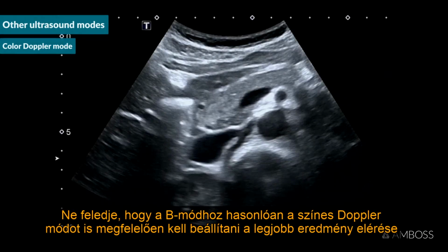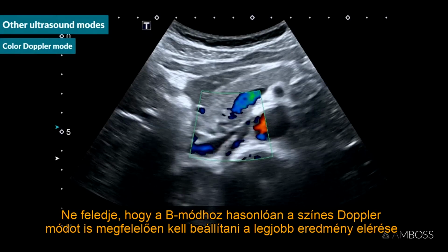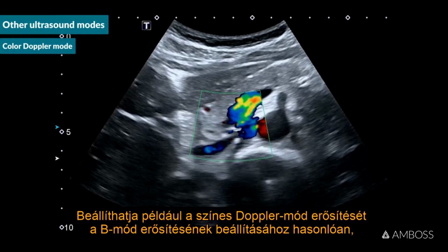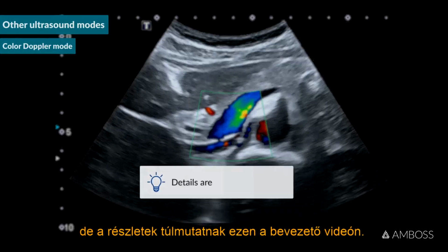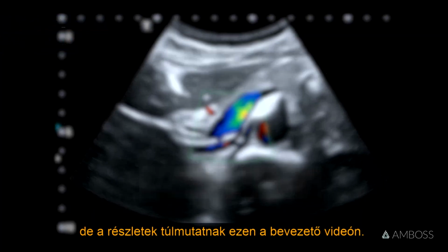Keep in mind that as with B mode, color Doppler mode has to be set up correctly to achieve the best results and avoid misleading findings. You can, for example, adjust the gain of the color Doppler mode similarly to how you adjust the B mode gain, but the details are beyond the scope of this introductory video.